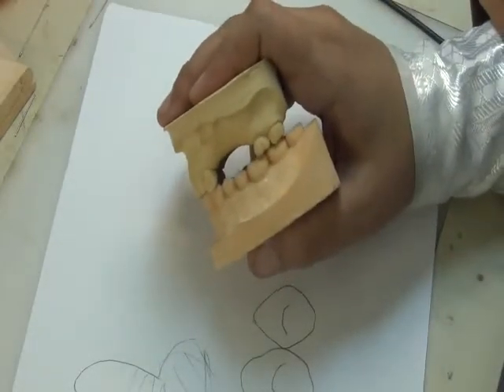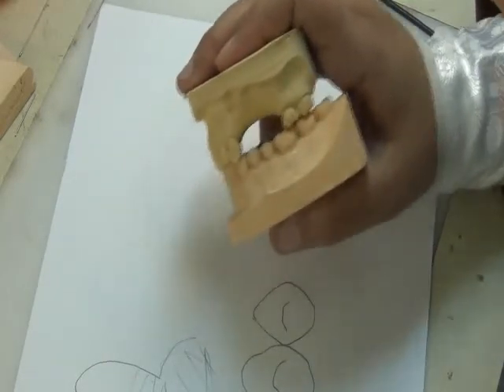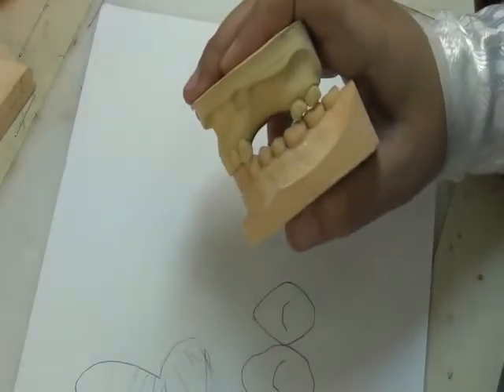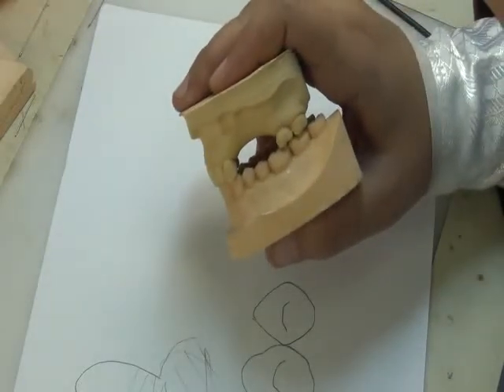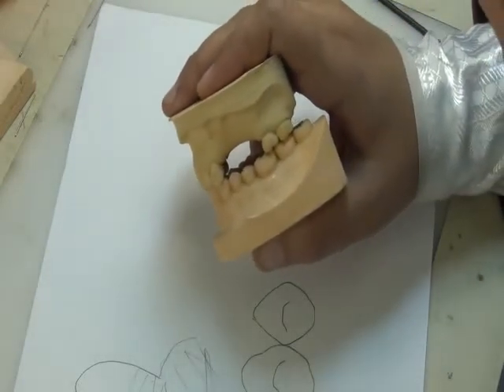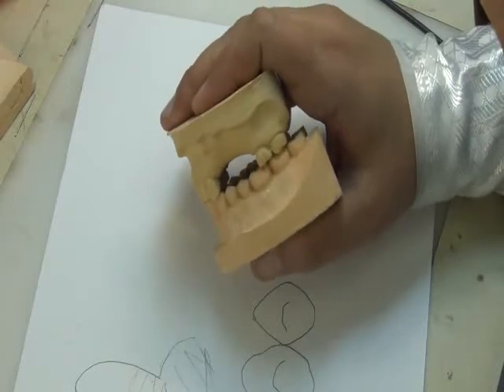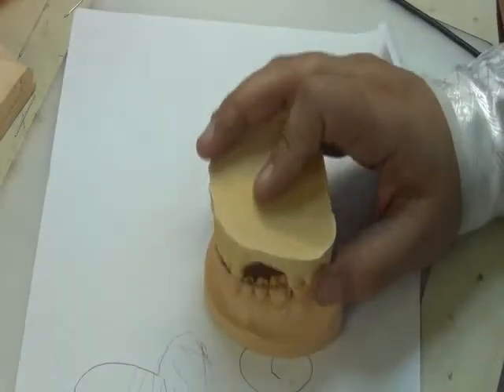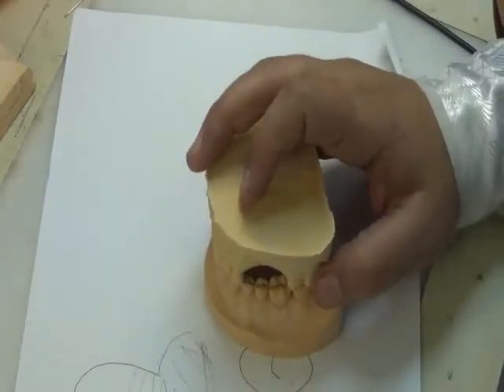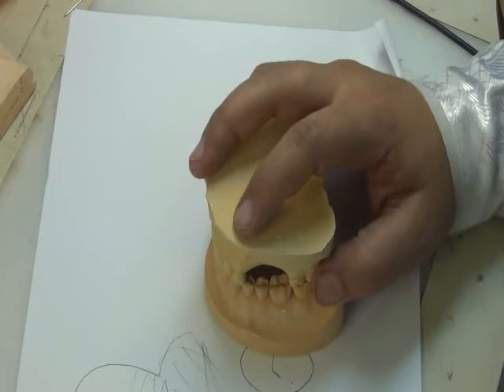Okay, an over-erupted tooth. If this was a definitive RPD, we might do crowning for an over-erupted tooth or change the shape or morphology. But because we're using a temporary RPD, if the discrepancy is not too large, I can use the same occlusal table, even if the tooth is a bit high from the lower side or opposing side. And we just make sure that when the patient moves sideways, this high tooth is not hitting or causing premature contact. We check the occlusion very well inside the patient's mouth.